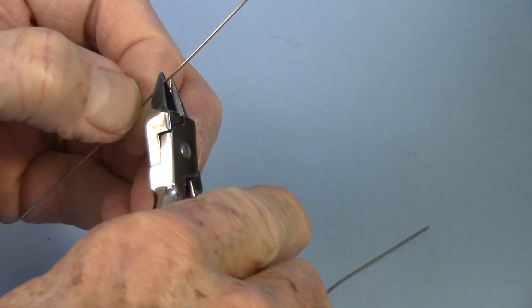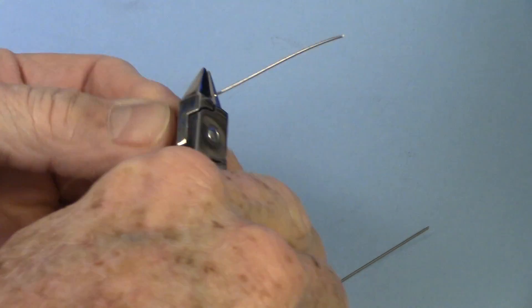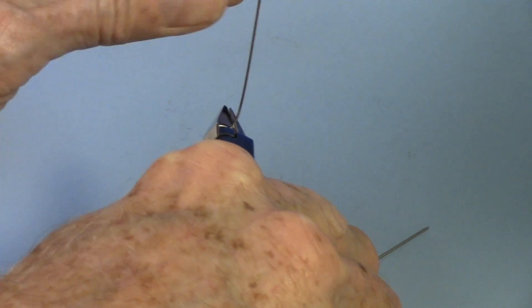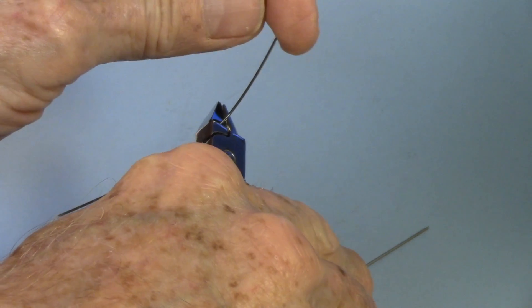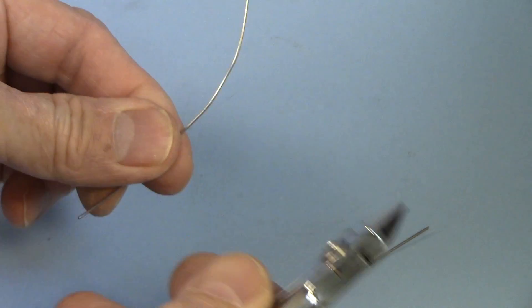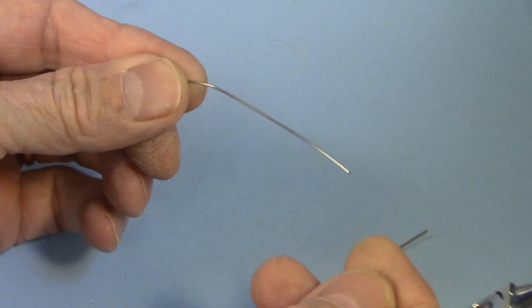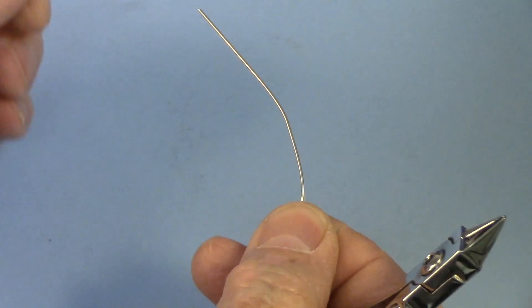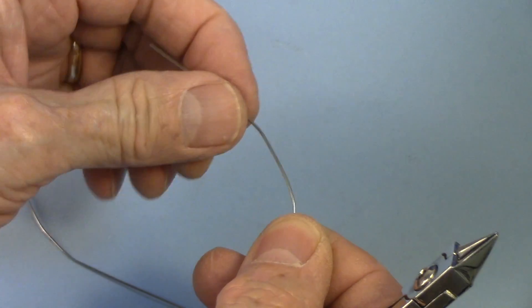This wire is softer, and it doesn't take much at all to bend this wire, and it doesn't come back. So just a little bit of bend at all causes this to deflect, and you exceed the elastic limit.